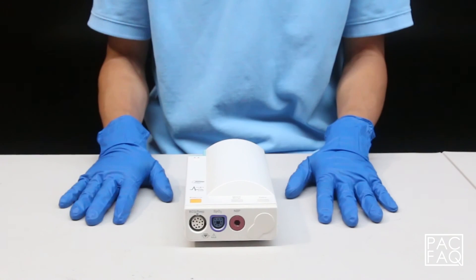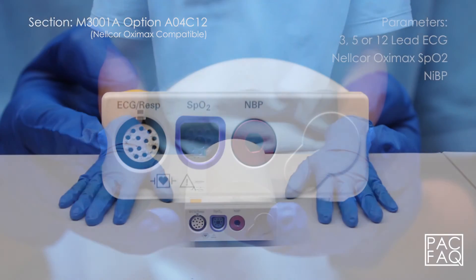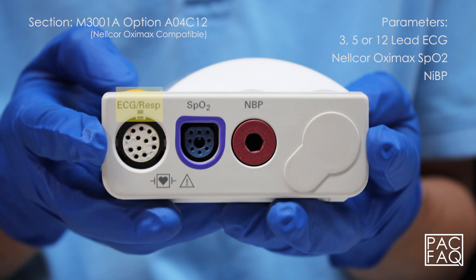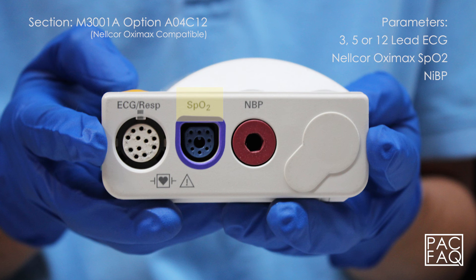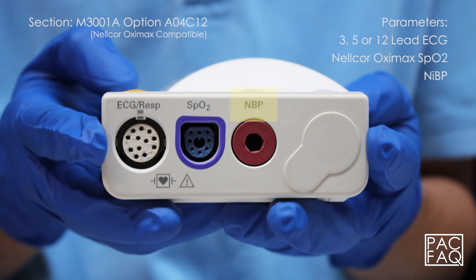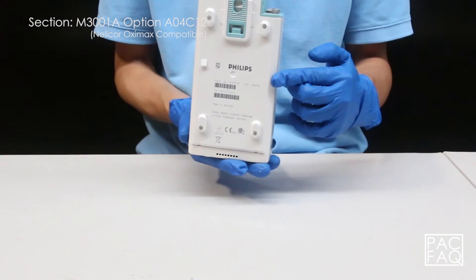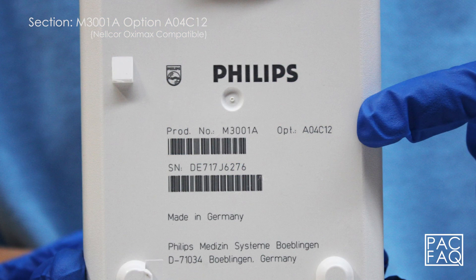Here we have option A04 C12. This unit comes with parameters 3, 5, or 12 lead ECG, Nellcor OximaX SPO2, and non-invasive blood pressure. The product identification and serial numbers are located on the bottom of the unit.